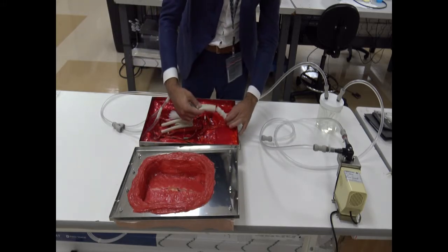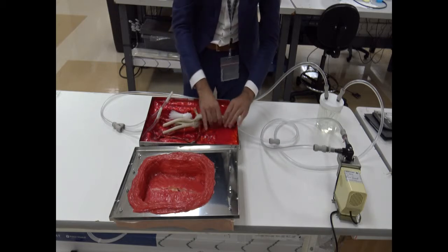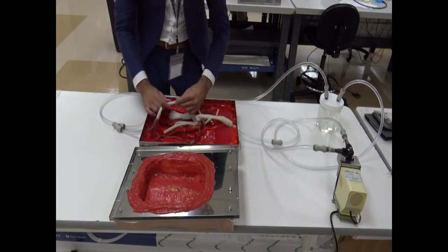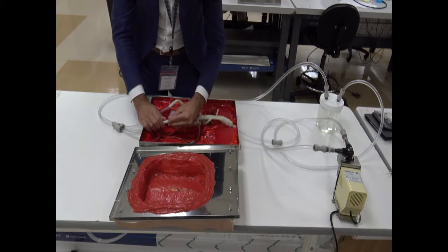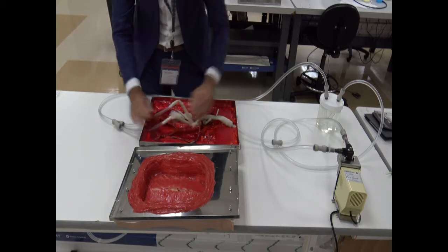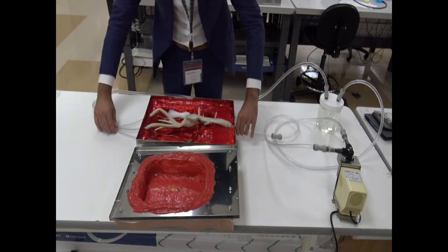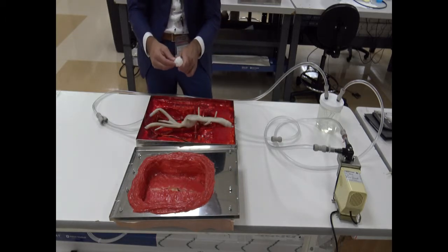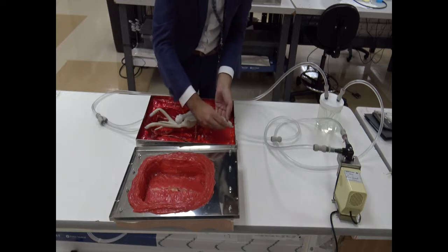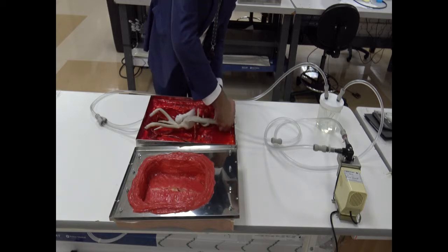Then we just have to slide this component on the proximal aspect and this component on both iliacs. Like this. Stretch it a little bit. And at this point, what we're going to do is start putting some zip ties around the necks in order to make sure that we got good compression. So get some ties and start doing it like that.